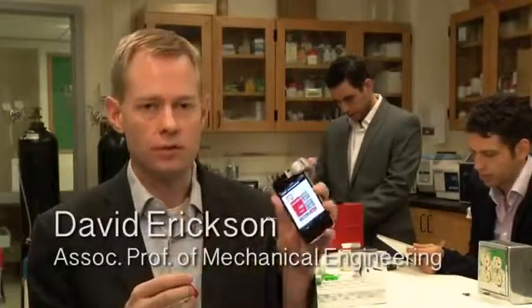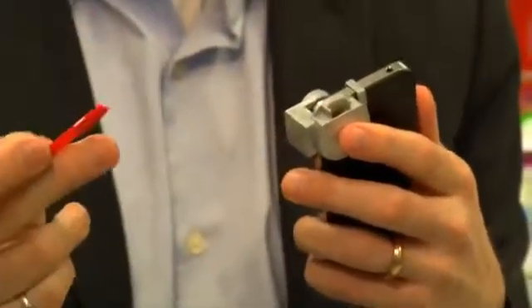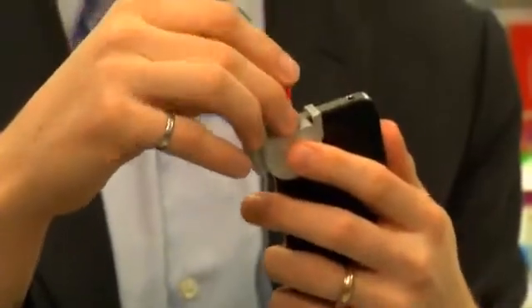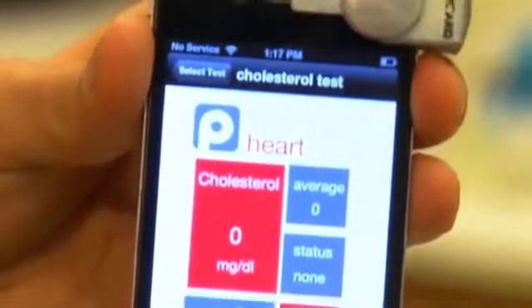What we've developed is a smartphone system for measuring cholesterol. The system comprises of an accessory that fits over a smartphone just like this and a test strip. You put a small drop of blood on the test strip, fit it into the back, open up the app, press a button, and it tells you what your cholesterol levels are.